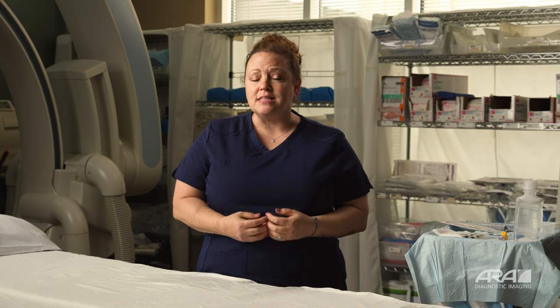I know that we've covered a lot of ground today, and if you're not in the medical field, this is incredibly overwhelming and very intimidating. I encourage you to enlist a friend, a family member, or someone you trust to help you care for your drain. Become very familiar with the drain that's been placed in your body — the catheter tubing, the bag, the bulb, whatever drainage system you have. Don't be afraid to touch your body or the drain. The more comfortable you become with this, the easier it's going to be. If you have questions or problems, fall back on your medical staff. Contact your doctor's office, contact your nurse, and let them help you through this. We know you can do this — it's going to be a little strange at first, but you're perfectly capable.